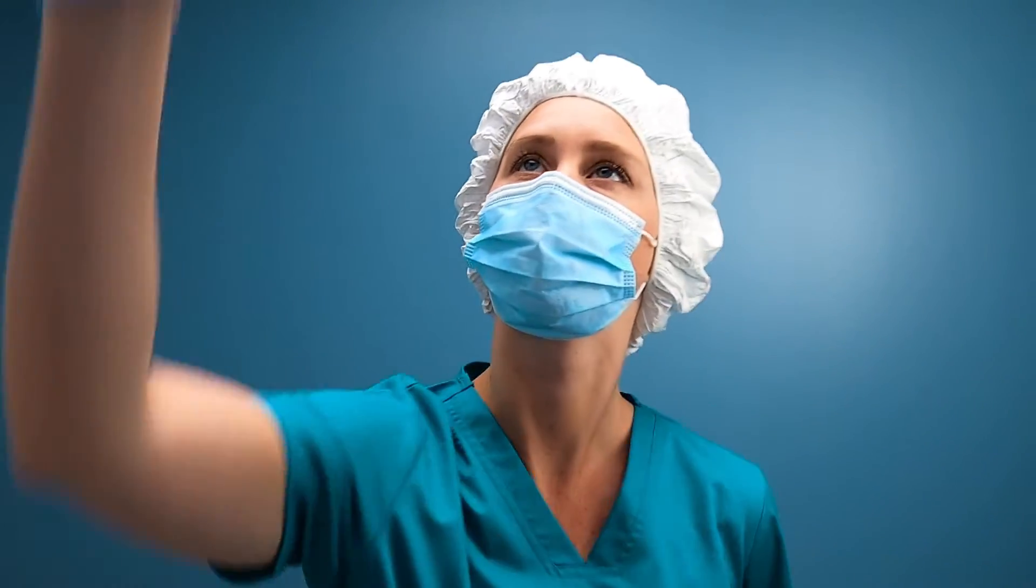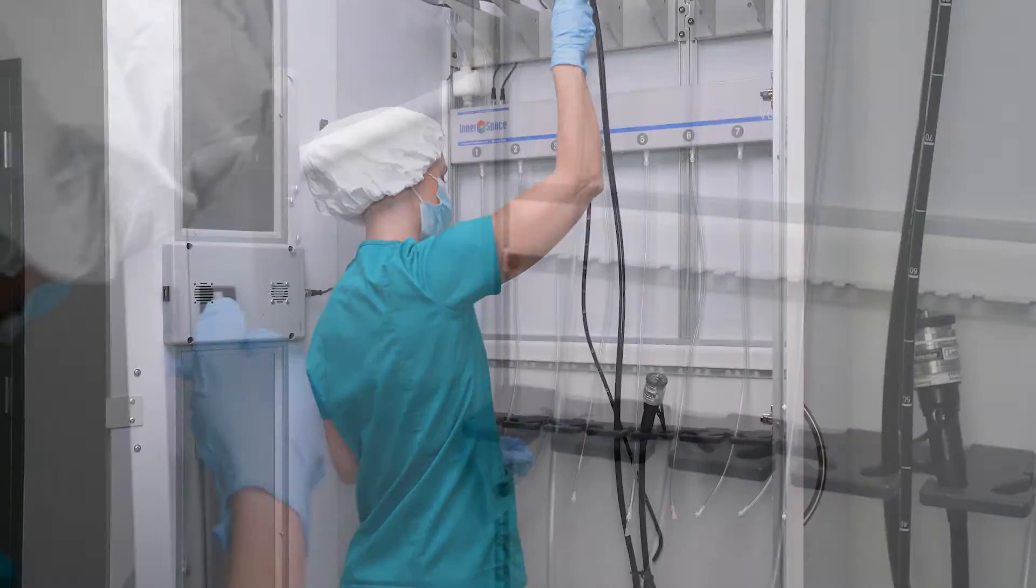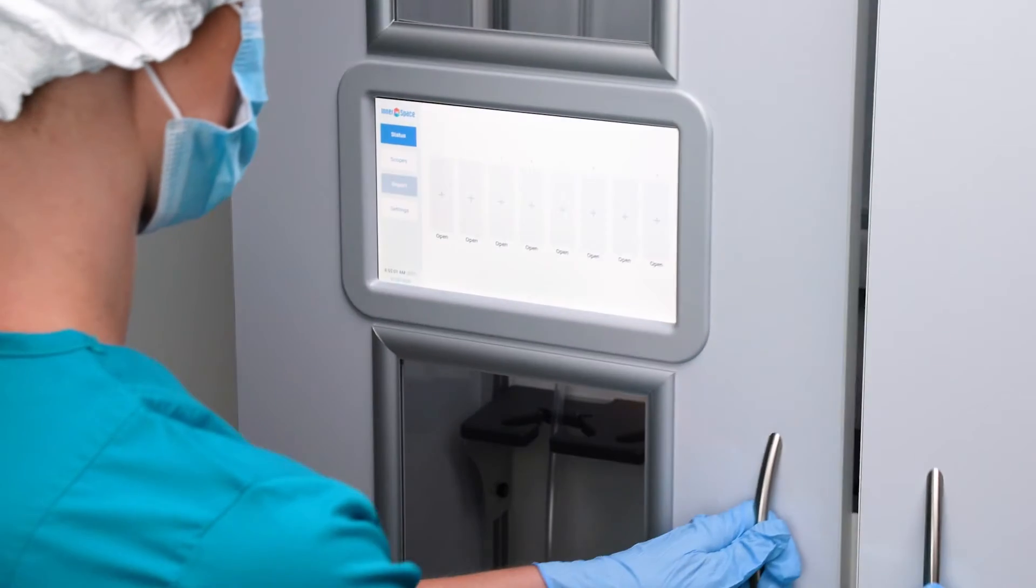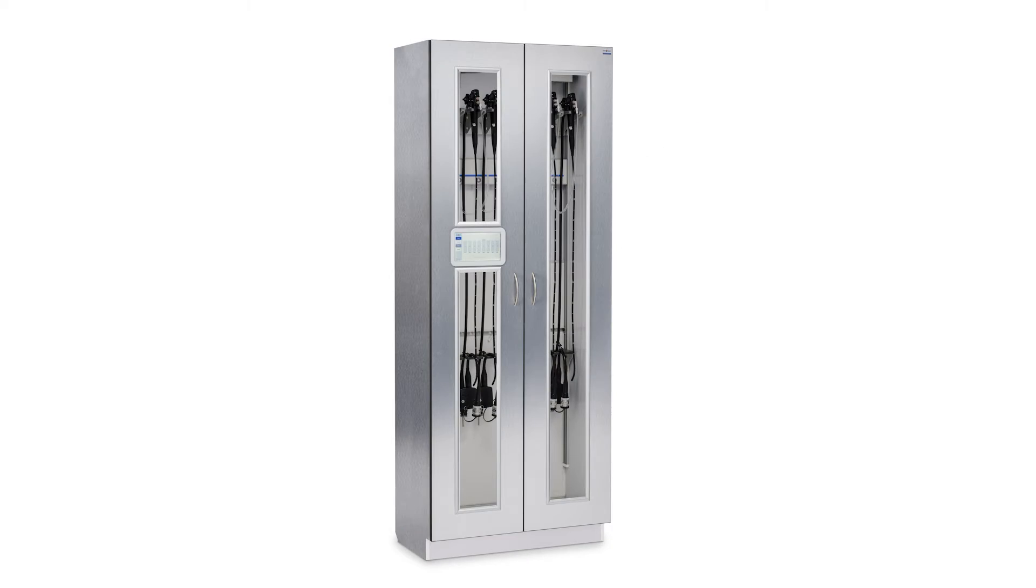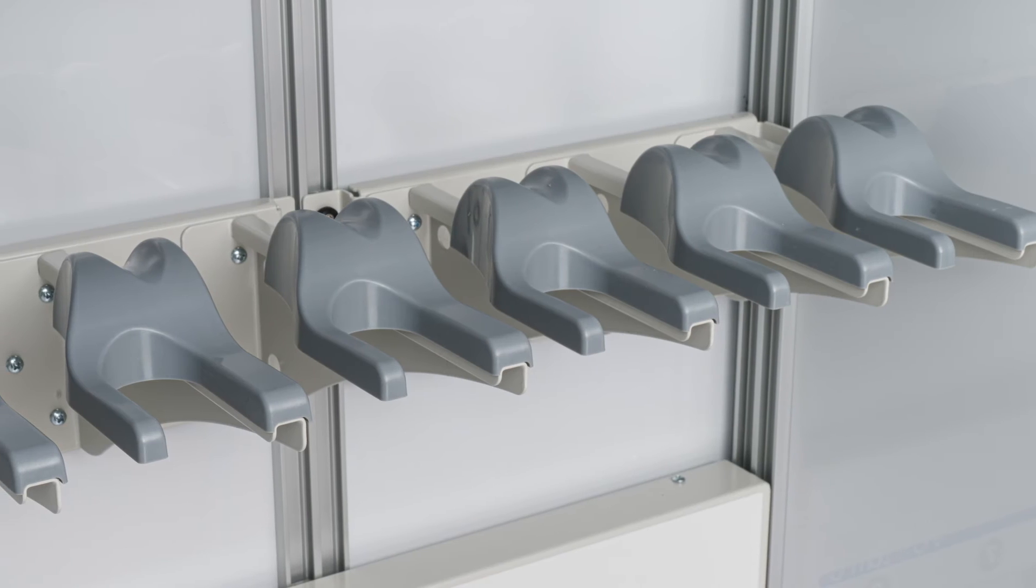Check-in and check-out steps ensure scope information is documented and supports compliance. The system also generates a report detailing all scope activity within the cabinet. The system can be customized to a department's protocols and scope inventory.